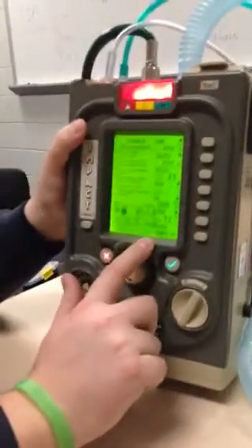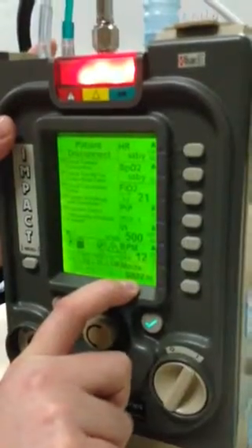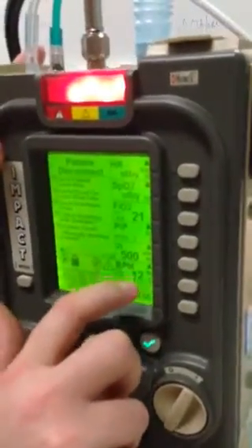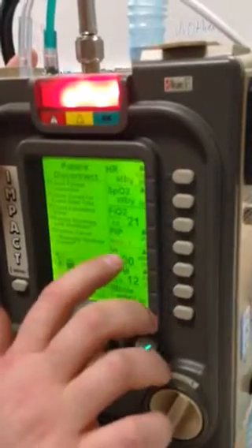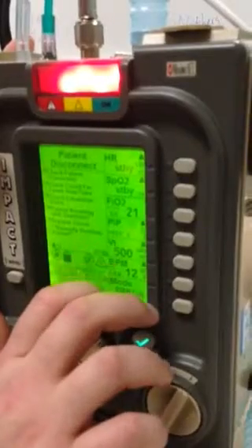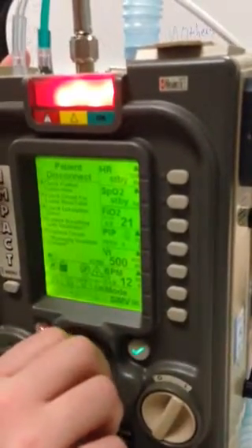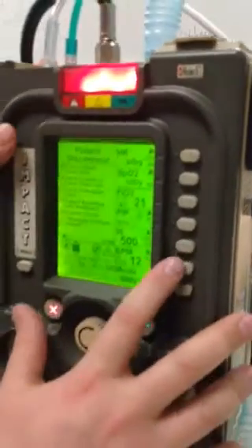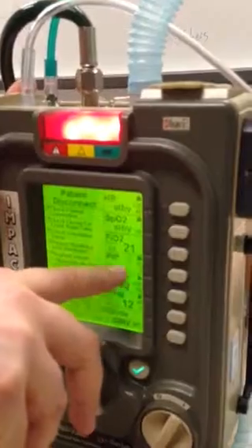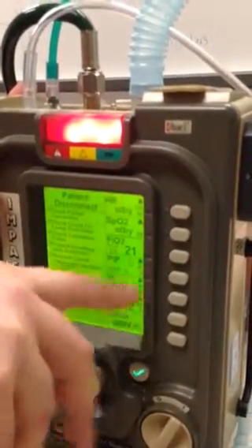So typically we want to be in SIMV volume mode. The rate, or breaths per minute, will be 12 or whatever you decide. Volume is going to be right around 500. It'll be 7 to 10 mLs per kilo, and that's with ideal body weight for the patient. PEEP, start at 5. And that's normally set up on 5, correct? Yep, this will auto populate to 5.